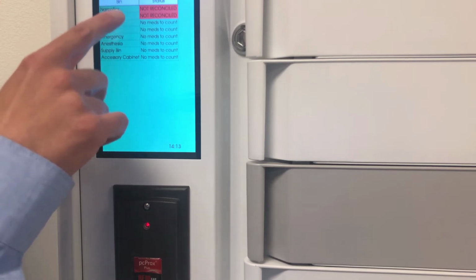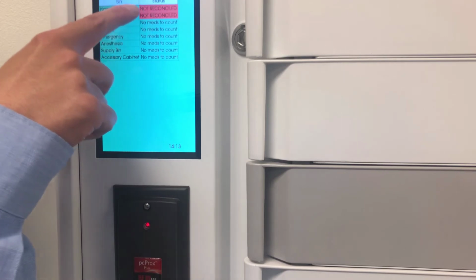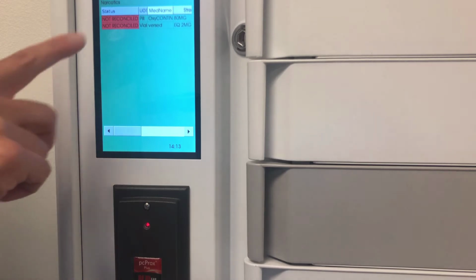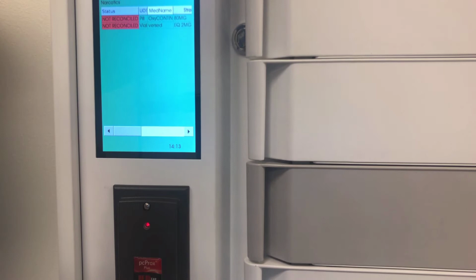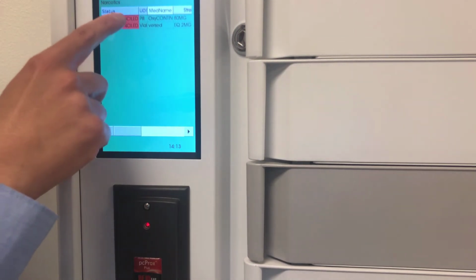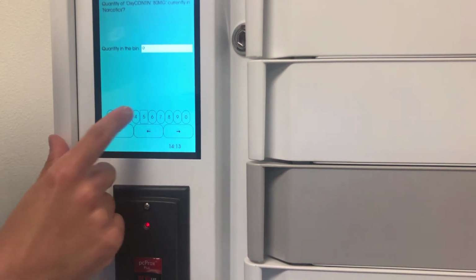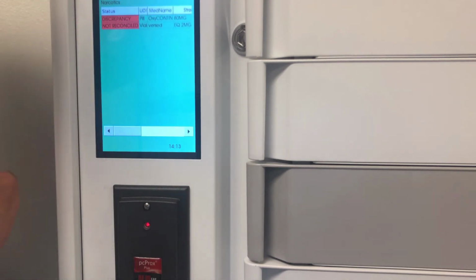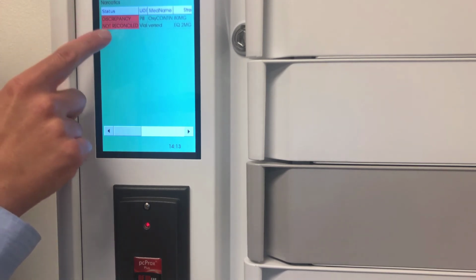These bins here do have inventory management turned on. So these bins I have to count. It's showing not reconciled right now. So if I come in and look at this bin, the bin is unlocked now. I can pull that open and then start counting the drugs. And so it's going to show me each drug, and I would count drug by drug. I would enter a count, and let's say I put a count in. I don't have the right count here, so it's showing me the discrepancy. If I entered the correct count, it would show it's reconciled.